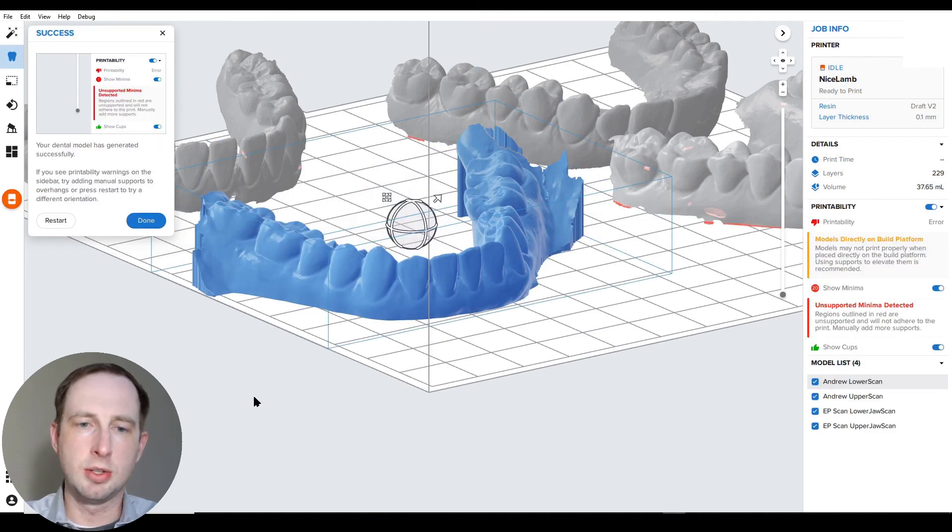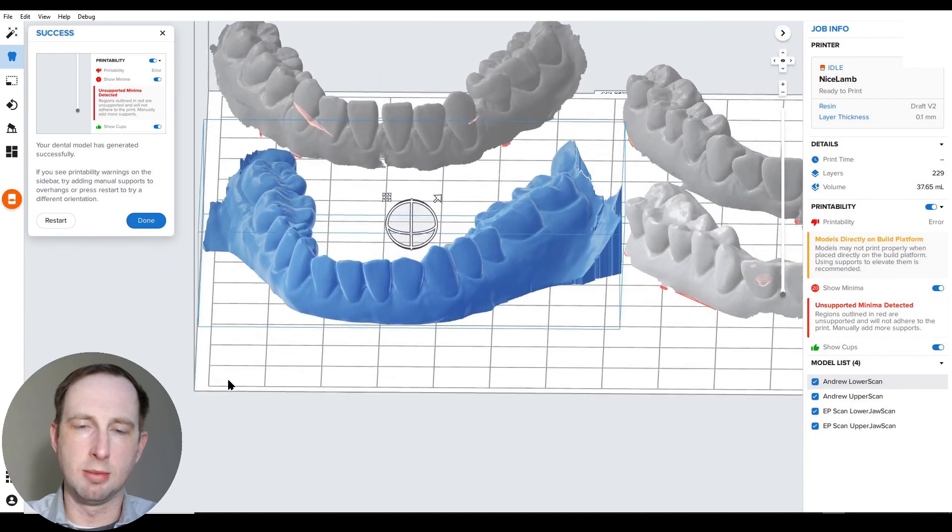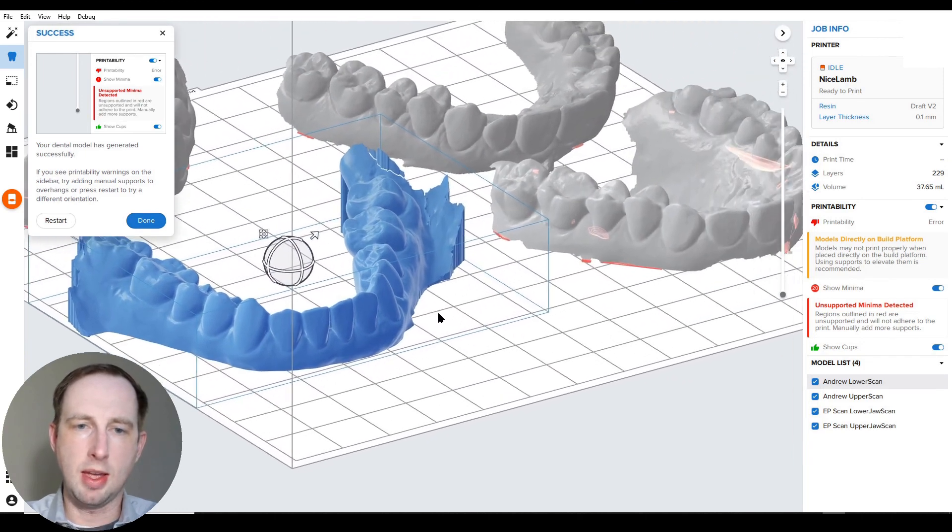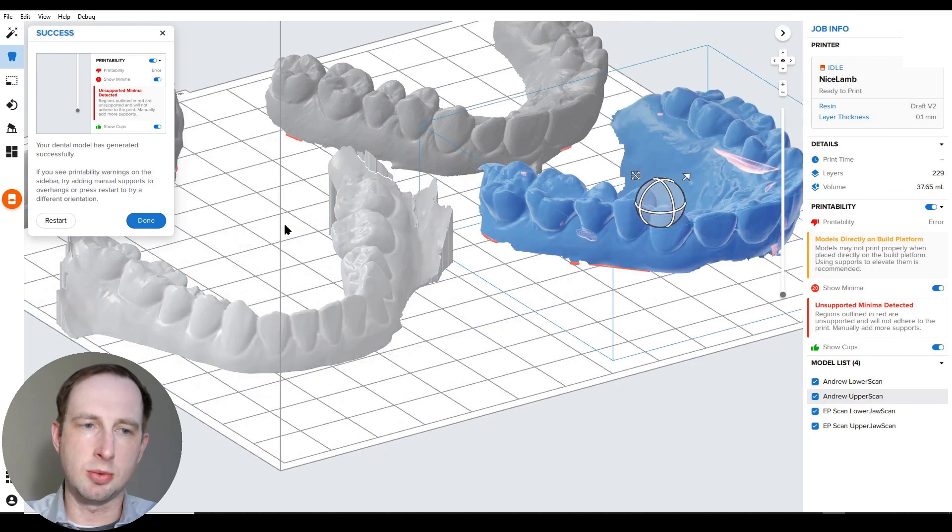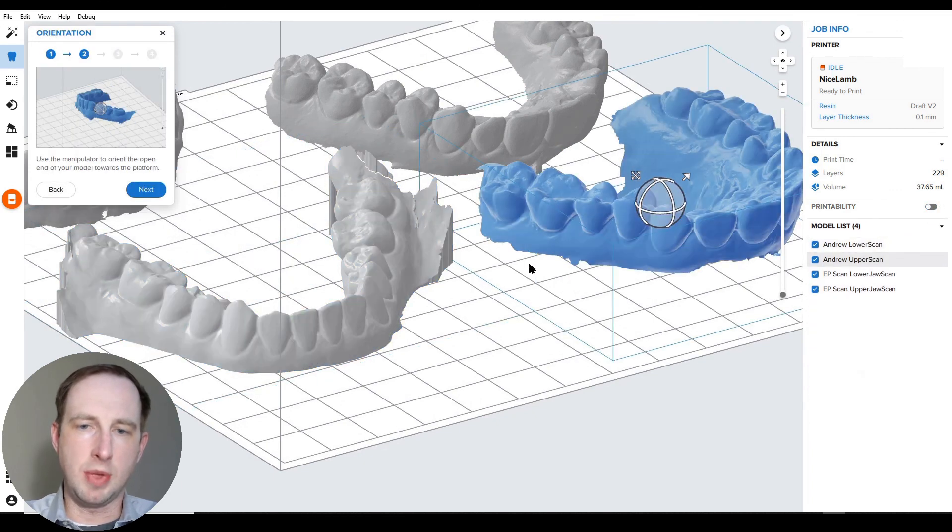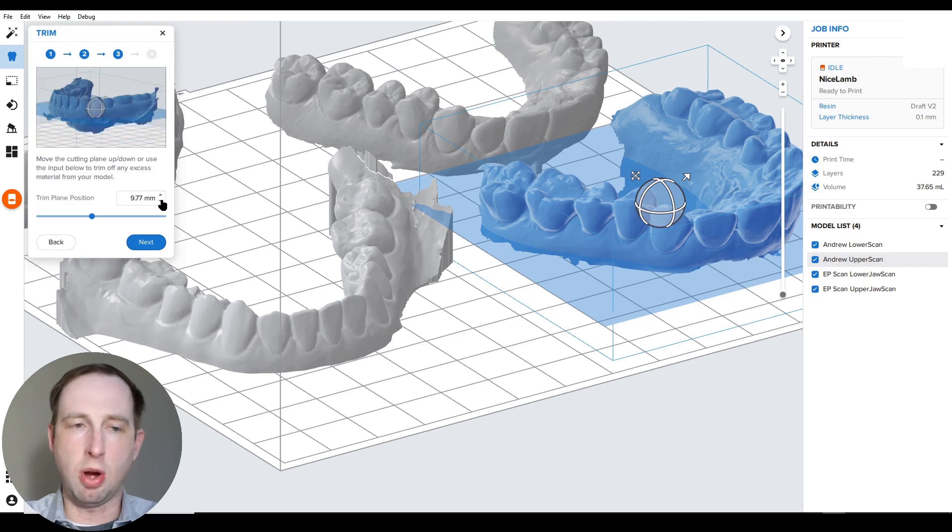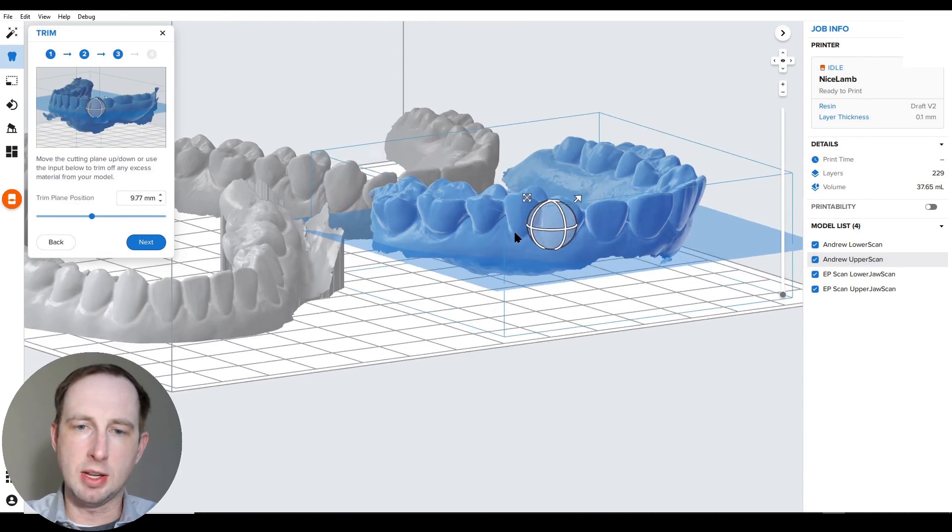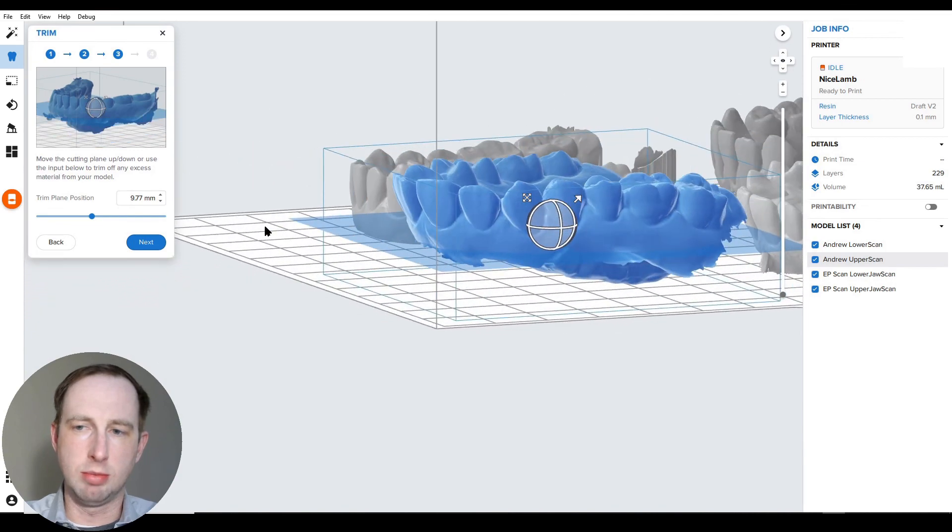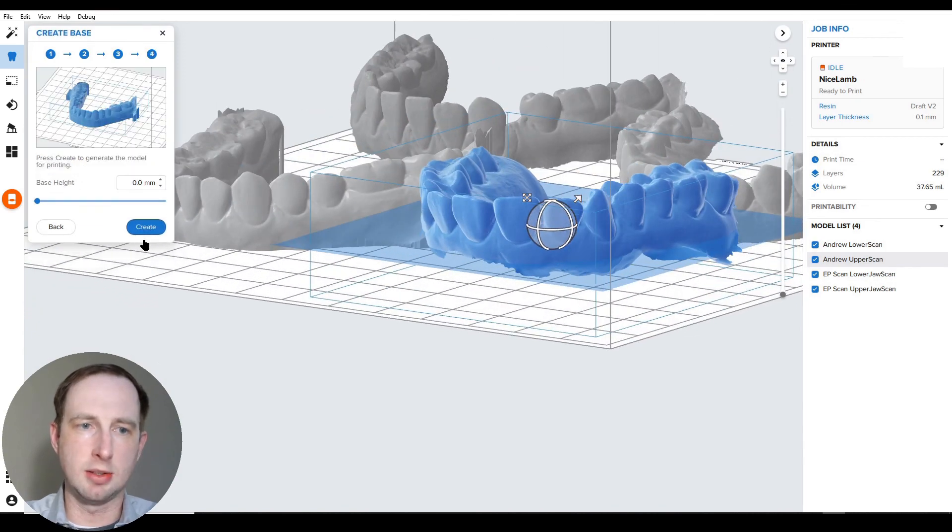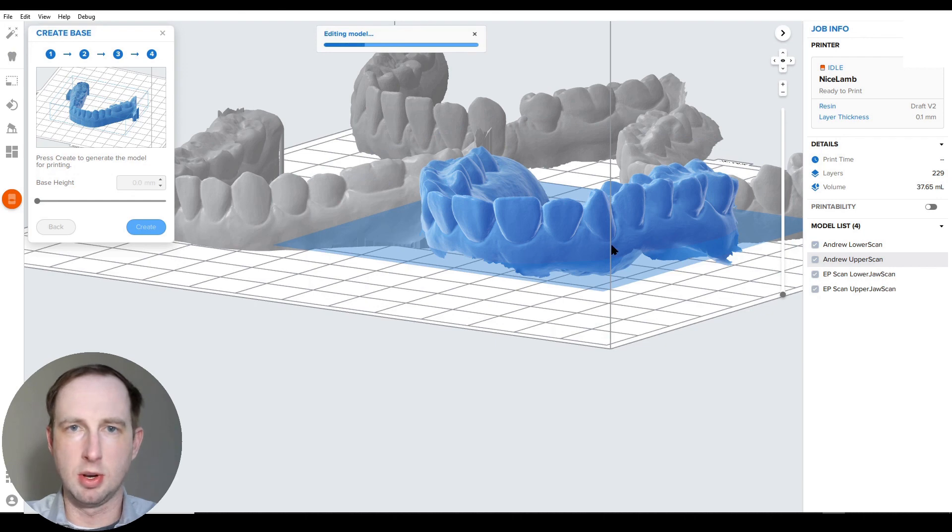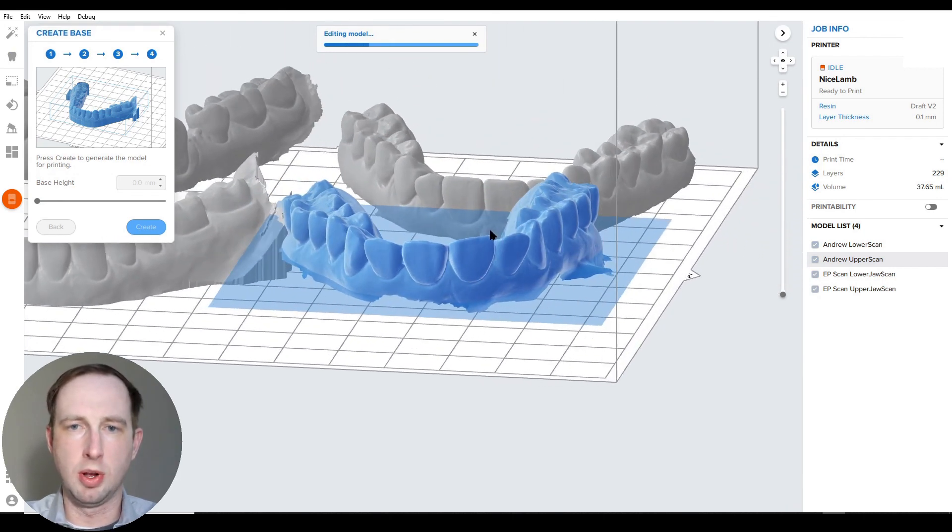Okay, so this model now has been based. It's ready to go. And the really neat thing here is you can just click on the next one, hit restart, or click off of it, hit done, click on your next model, open up scan the model like so, and it keeps your plane position. So this is really good for this one too. Next, next, it's going to calculate this model just like it did the previous. Wait for this to go, and then we'll do the next two.